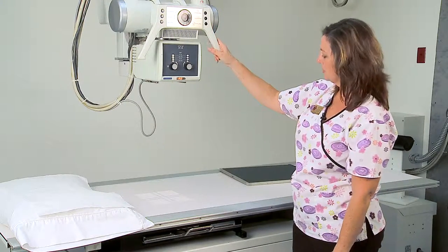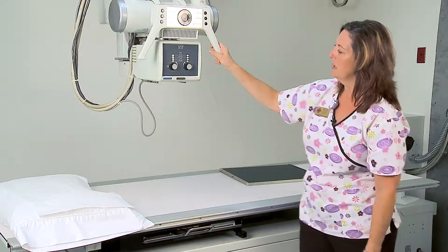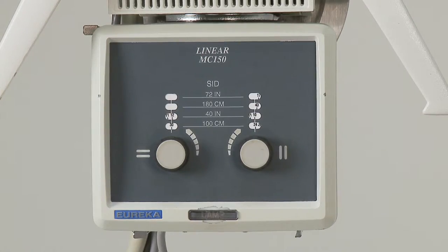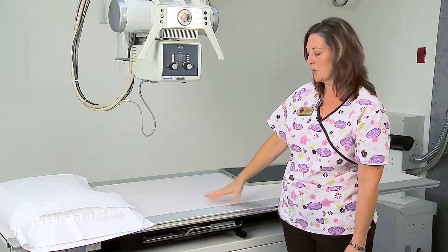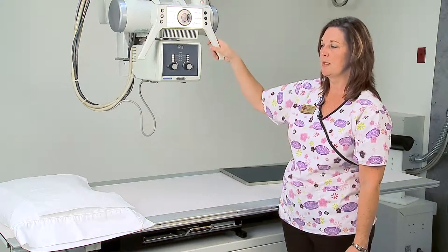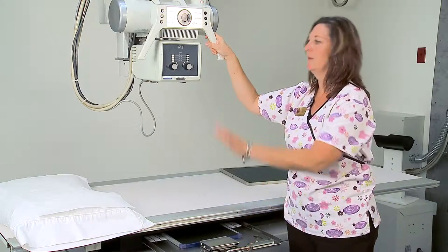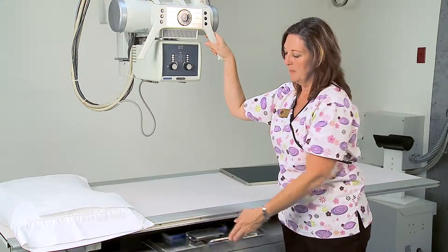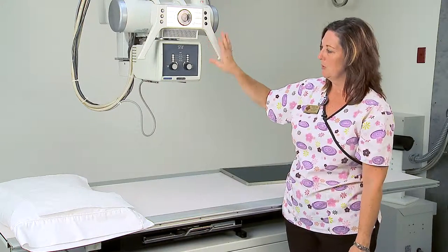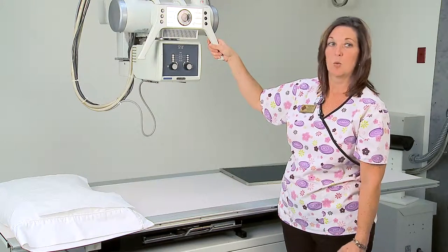We are unable to get 72 inches to the table, but we will be able to get 72 inches to the upright wall bucky — a vertical standing upright wall unit that houses a cassette. We will show you how to tube-film align to the upright wall bucky.